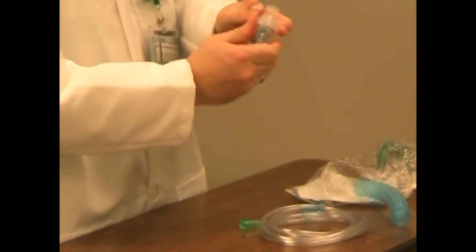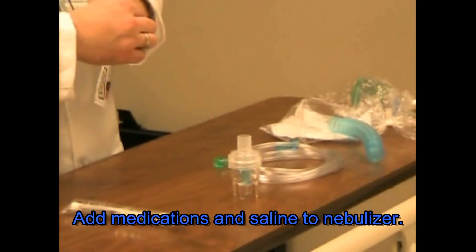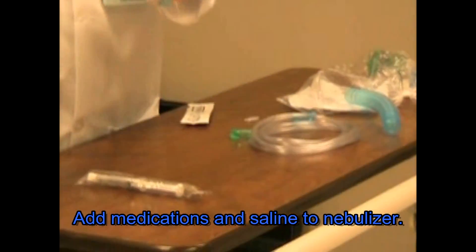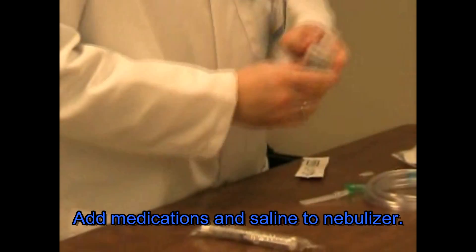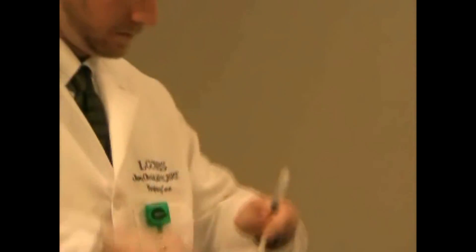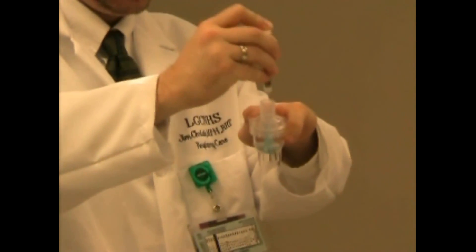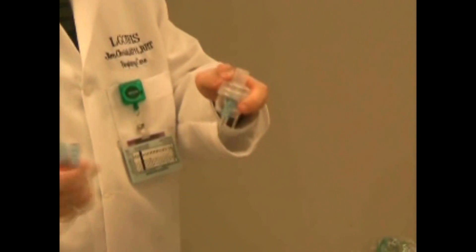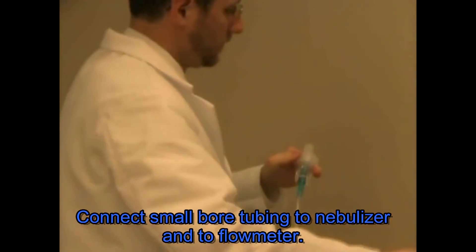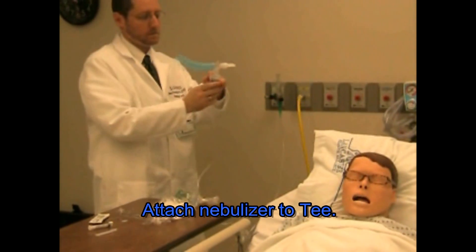Take your medication and check to make sure that the parts are there. Then add your medication to the vial, double checking again that you have the correct medication. Open the vial and carefully add it to the nebulizer, then add the saline solution — 0.9% — using approximately 3 mL of saline. Attach the connecting tubing to the nebulizer, and the other end to the air or oxygen flow meter depending on the standard of the individual hospital.